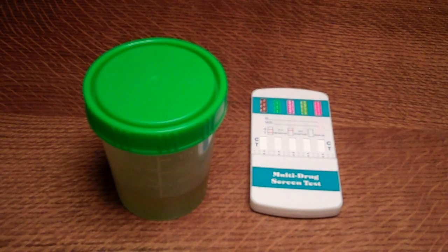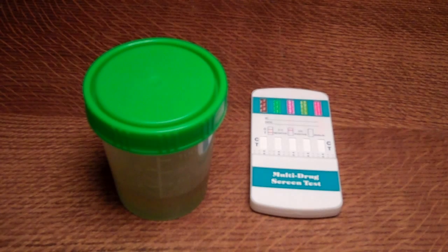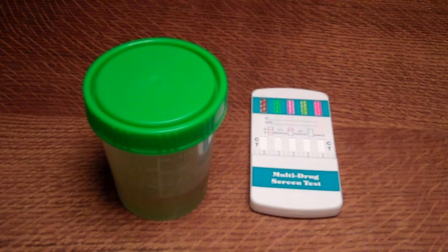Okay, in this video we're going to demonstrate how to do a five-panel drug test. This is a simple dip test in human urine, otherwise referred to as an in vitro test. You're looking for presence of drugs and metabolites of drugs in human urine. Urine testing is perhaps the most established route for drug screening worldwide.